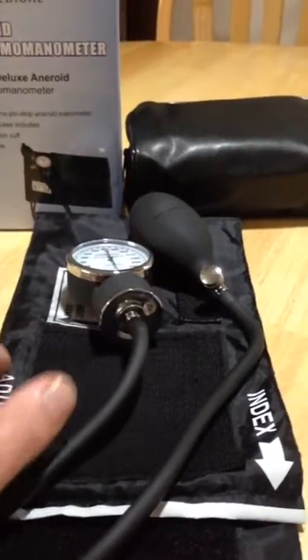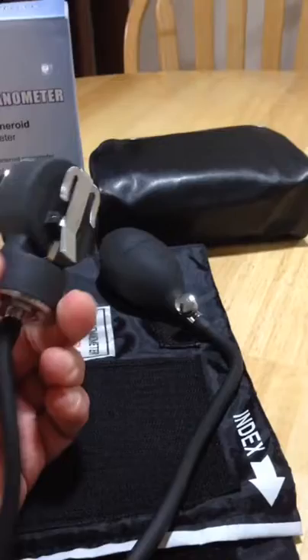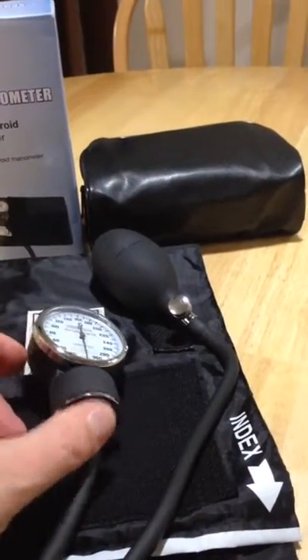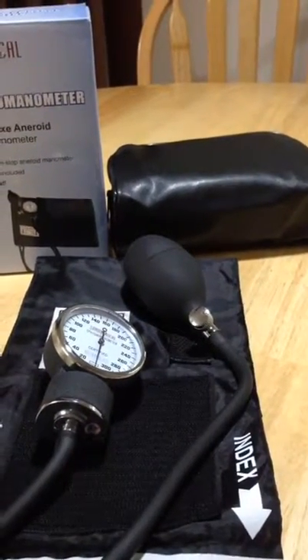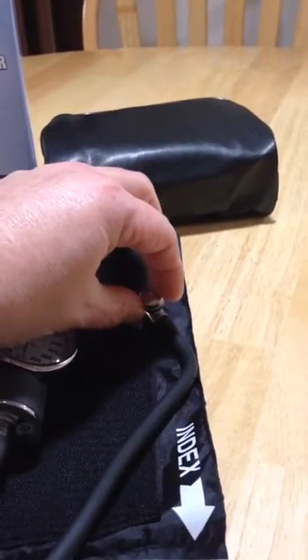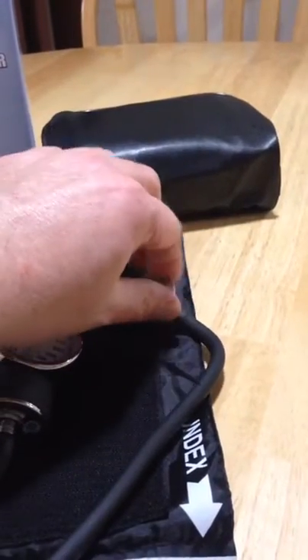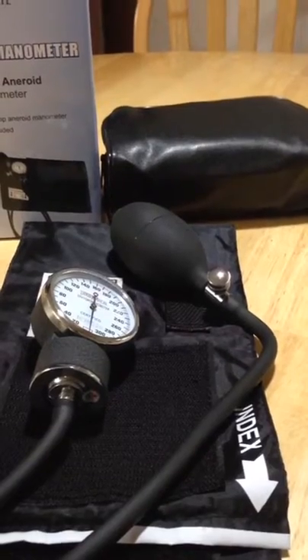This is the adult side, but this is a heavy duty piece of medical equipment — this is not a toy or anything like that. It's perfect if you're in the medical field, which my life is, and perfect if you need to take your blood pressure on a daily basis and want it done right. It's a simple pump up: you just turn the knob to tighten it and pump up the cuff, then loosen it to check your parameters and release the pressure.